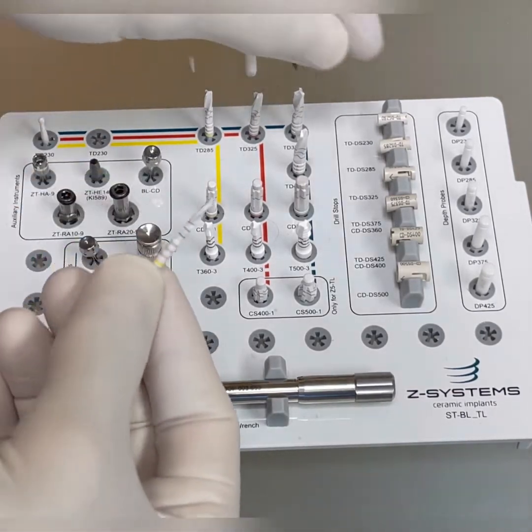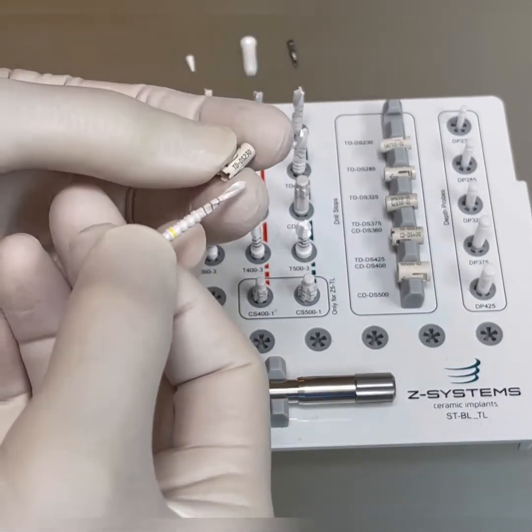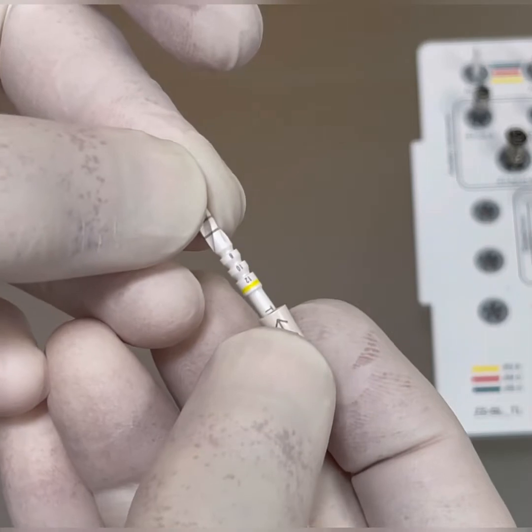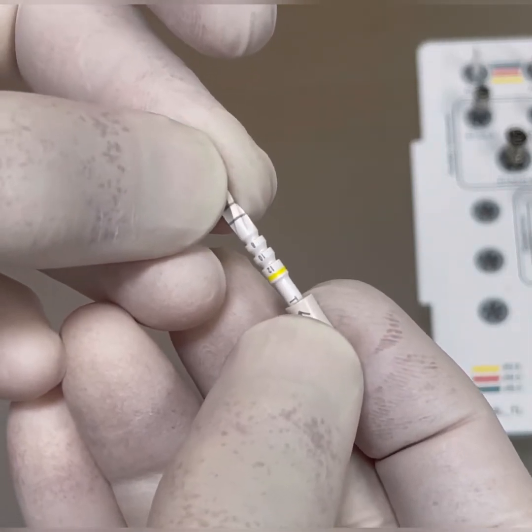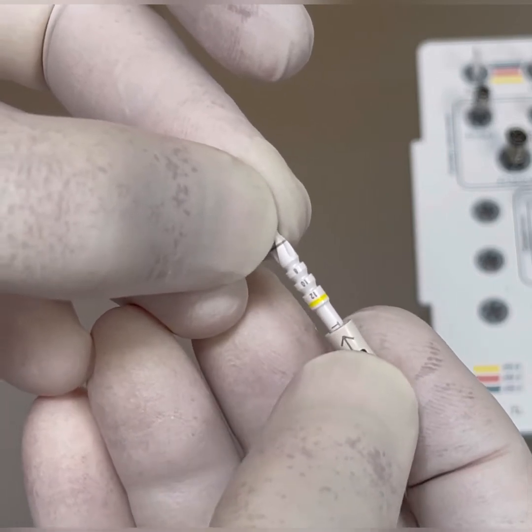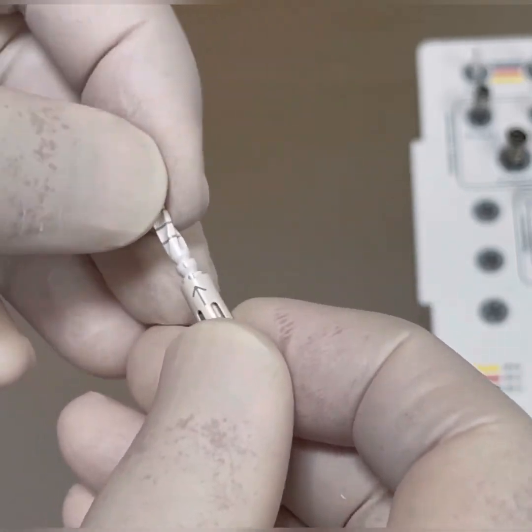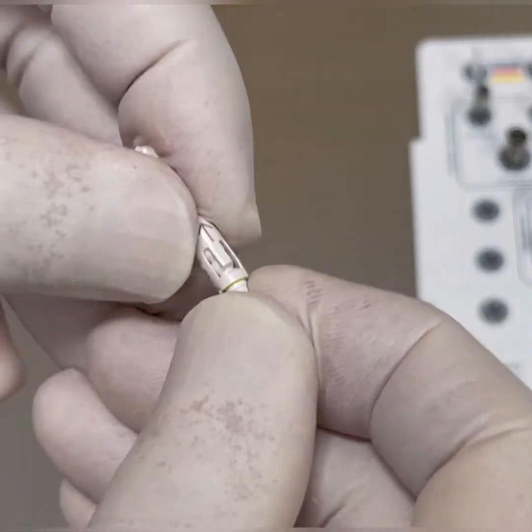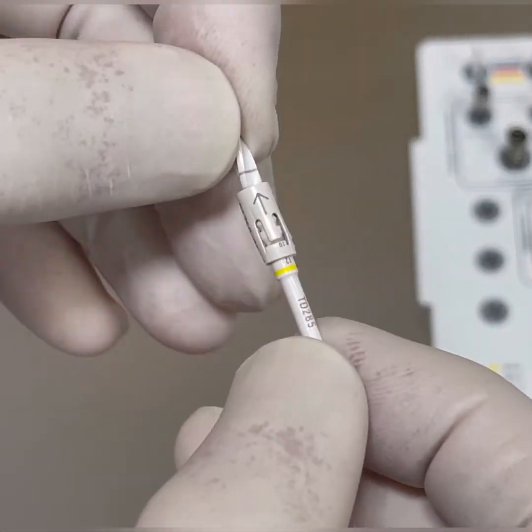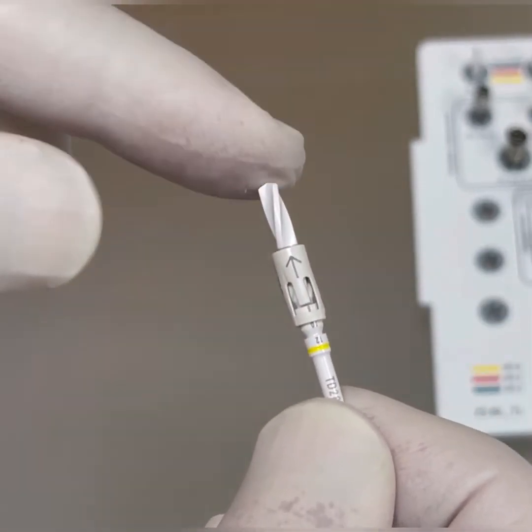To demonstrate, we have one stop for each burr. The stop is inserted from behind. There are three slots, each corresponding to a different length of the implant: 8, 10, and 12 mm. We advance it until we hear the first snap of the latch — that's 12 mm. We advance it more — that's 10. And the last notch is 8 mm.